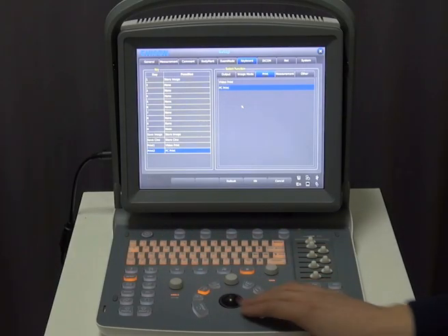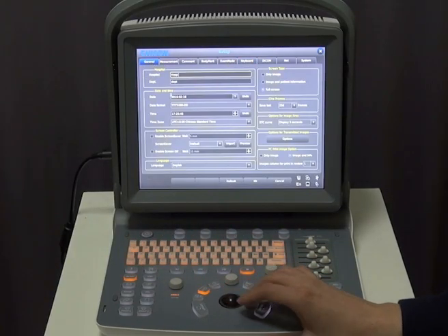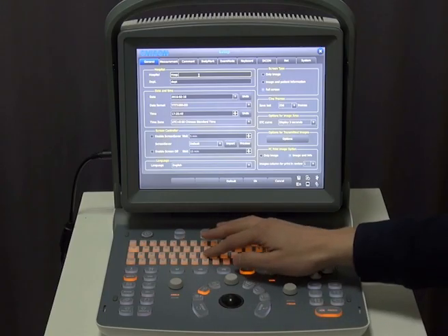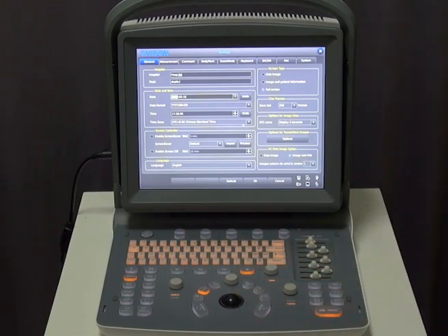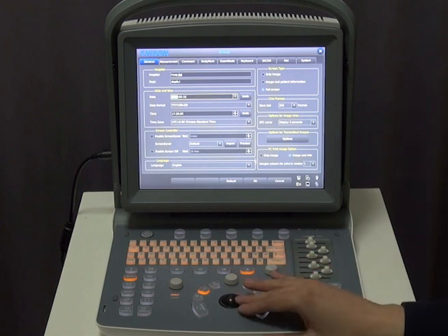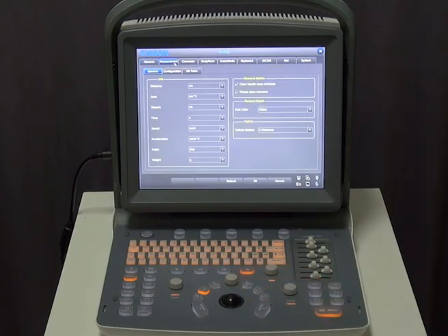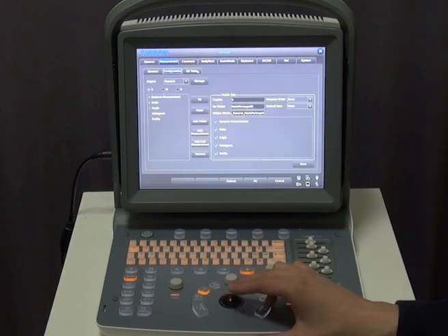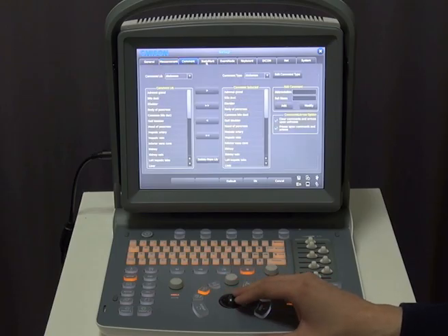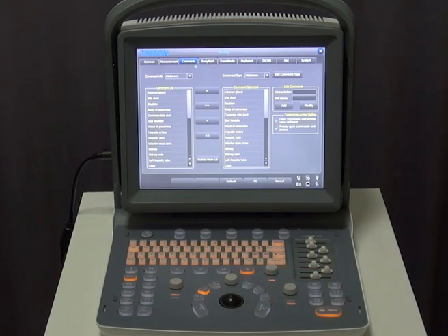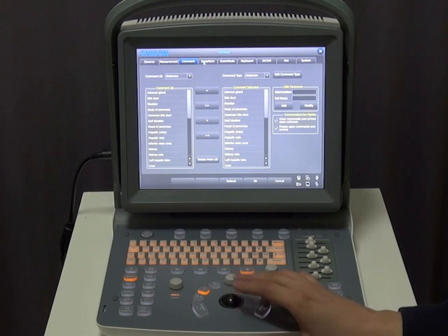Press Setup to set the system as you wish. In the general interface, we can set hospital and department, date, time, and time zone. We can also choose the language without restarting the machine. In the measurement settings, we can choose the unit of distance, area, volume, and so on, and set the color of the font and measurement options. We can add measurements or adjust the rank of different regions by clicking up and down. We can also customize comments, body marks, and exam mode.